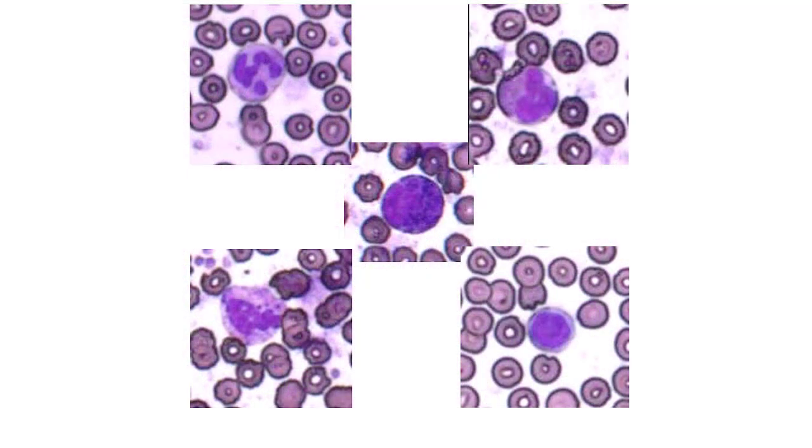Each of these 5 white blood cells illustrates a unique characteristic. As we work through each of these slides, please note that preparation and staining techniques change from year to year, so the overall coloring and darkness of the images might vary from slide to slide.